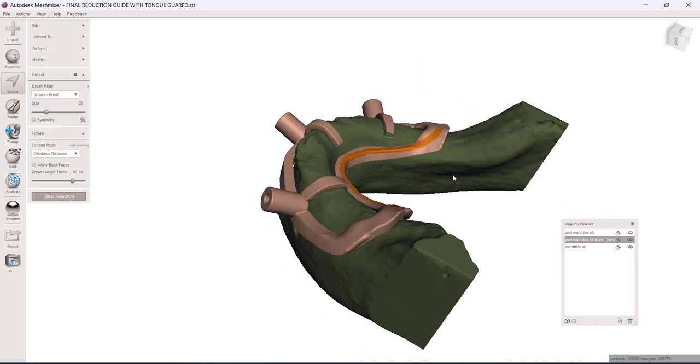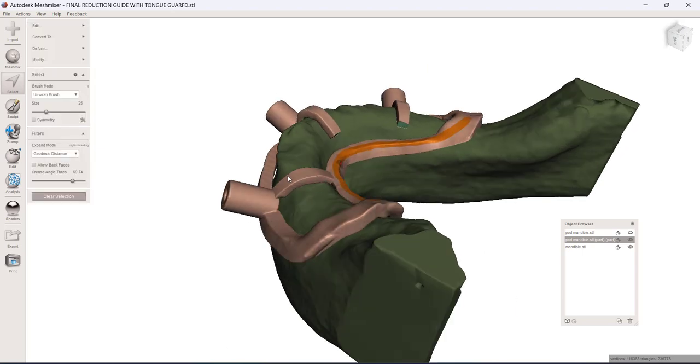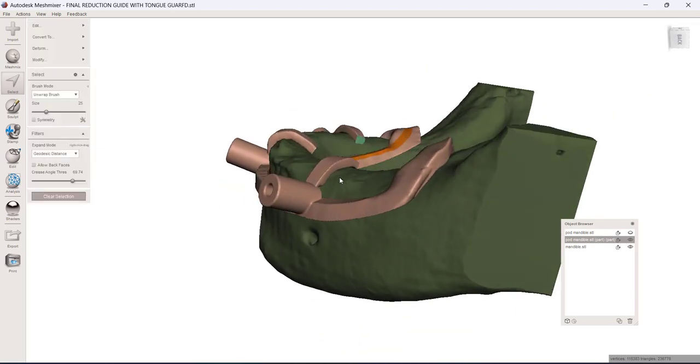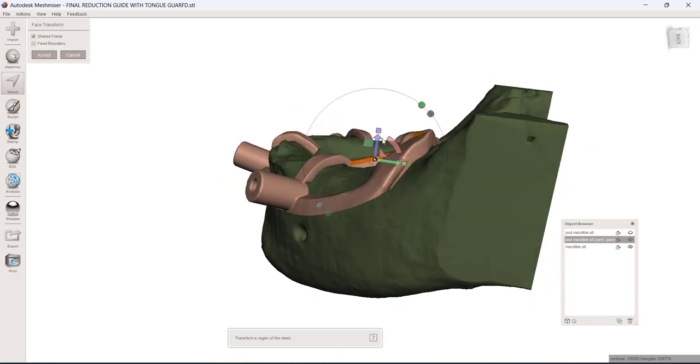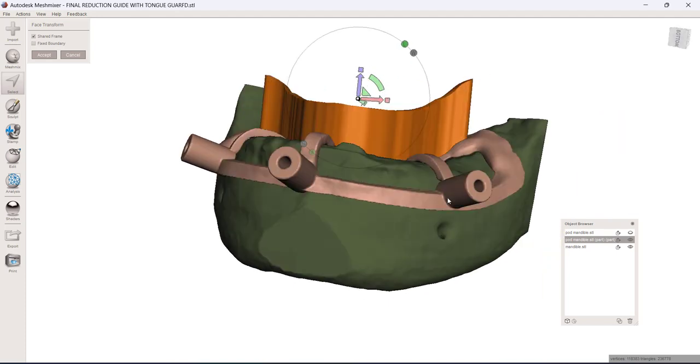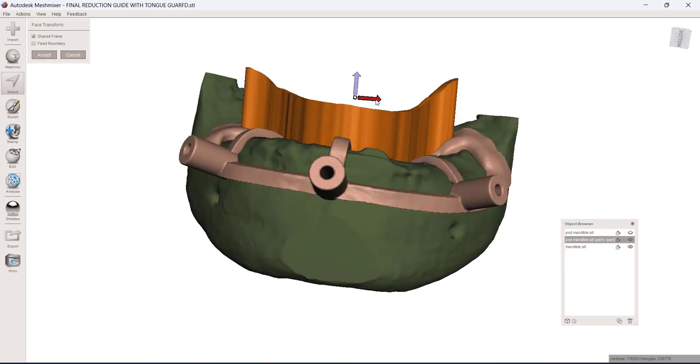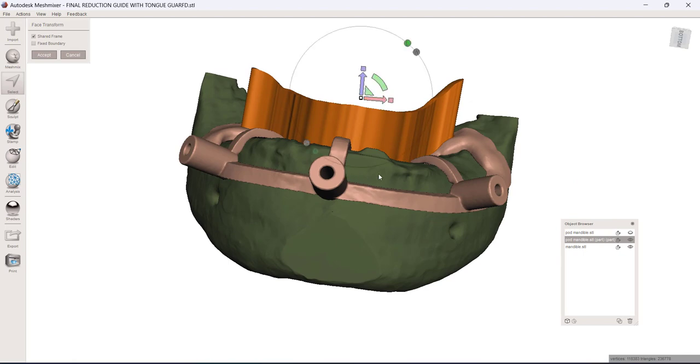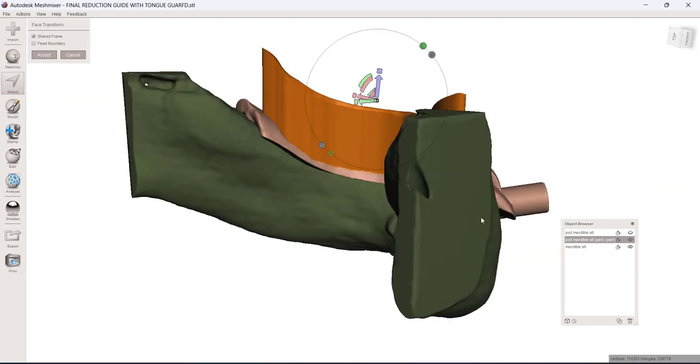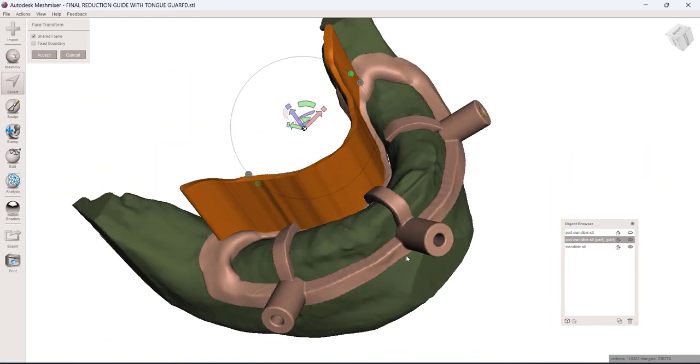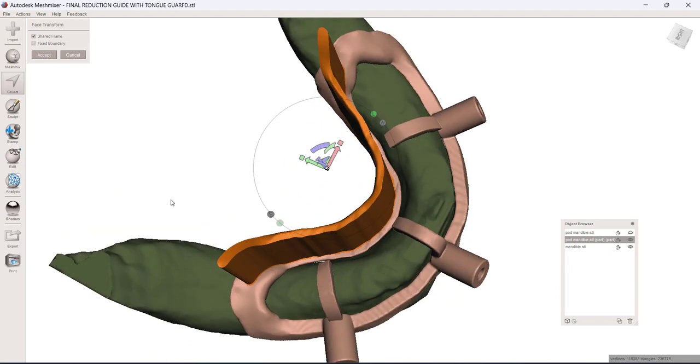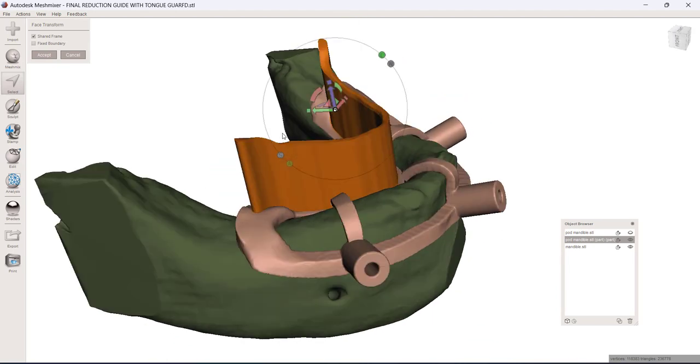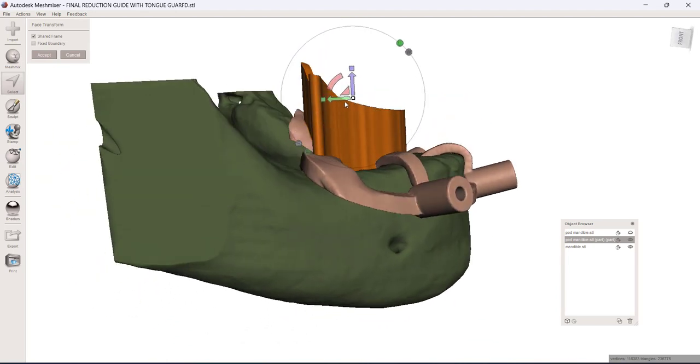So we've selected all this. I'll smooth the border of that. The hot key is B and now I'm going to push T for transform. And what I can do is just pull straight up on that. I'll get it straight up and down where it's somewhat symmetrical. And we can basically create a wall that will retract that tongue and keep it out of our surgical site.